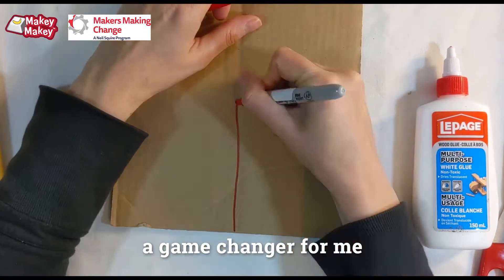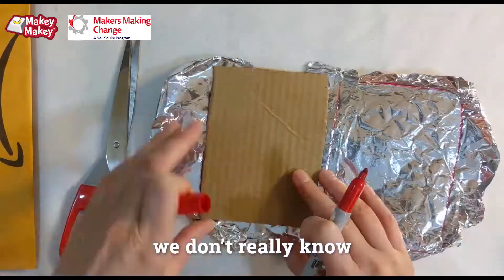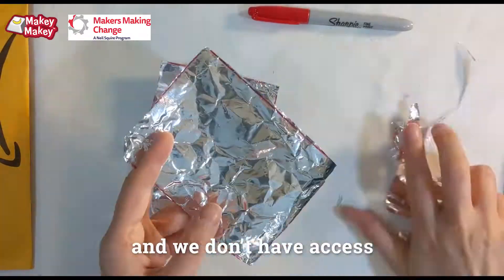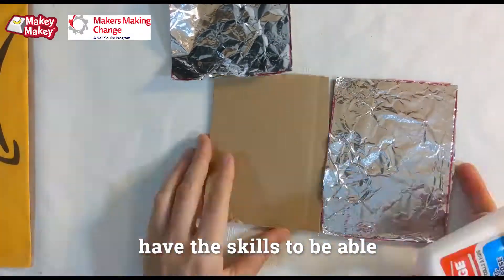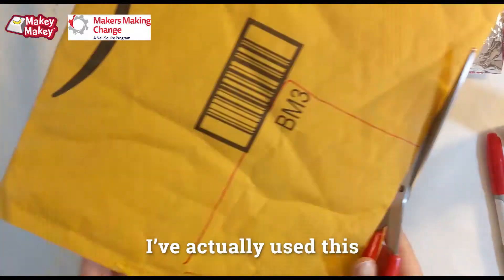This has been a game changer for me. Working in AT and AAC within the ISD, we know a child needs a switch but don't always know what kind. Sometimes we only have one of a certain switch and a kid is borrowing it, so we don't have access. By the time I'd be able to assess if they even have the skills, this is a great way to do trial and error.